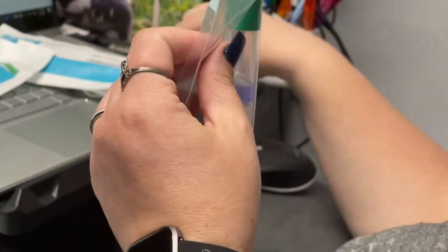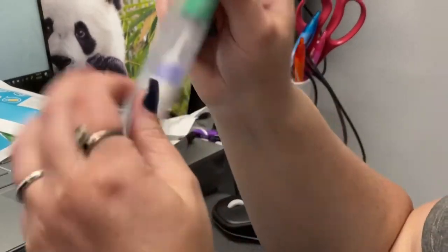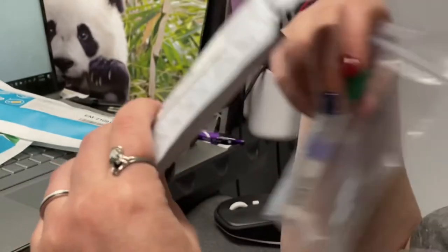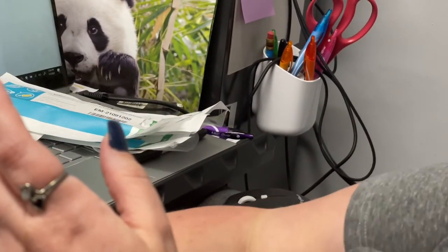It's already activated and everything, and this one's assigned to her — this is her little thing. This will go in one of the return envelopes, and I can track it. I'll know when they receive it. I signed up for text alerts, so they'll text me as it's going through the process.